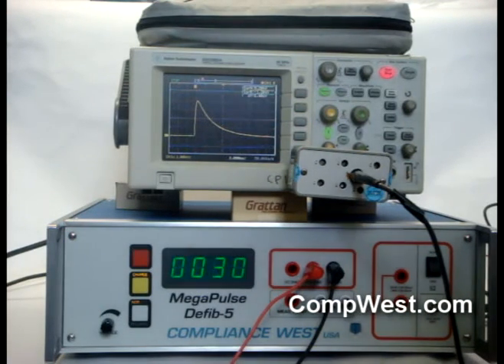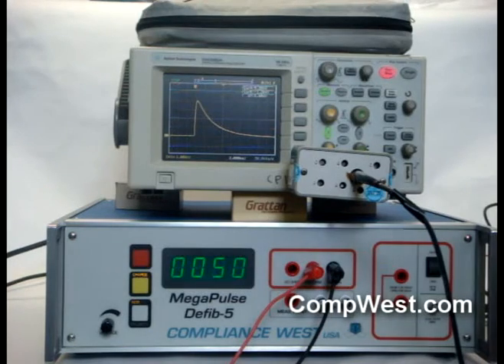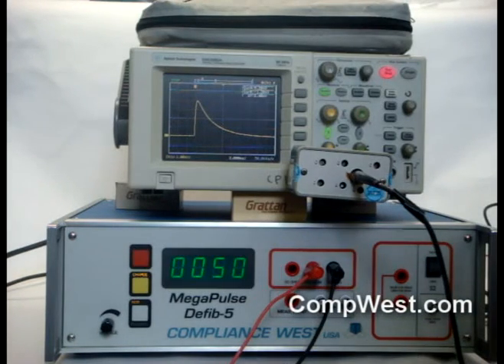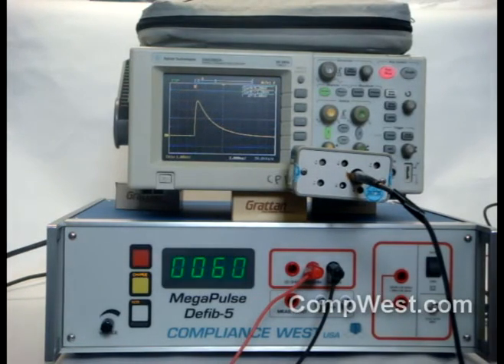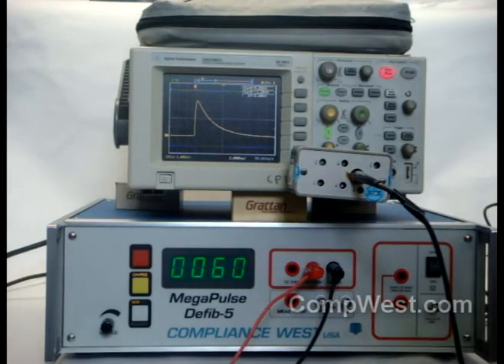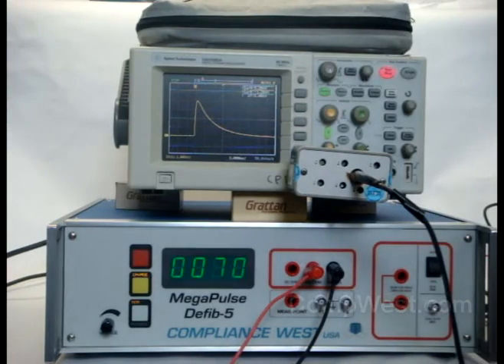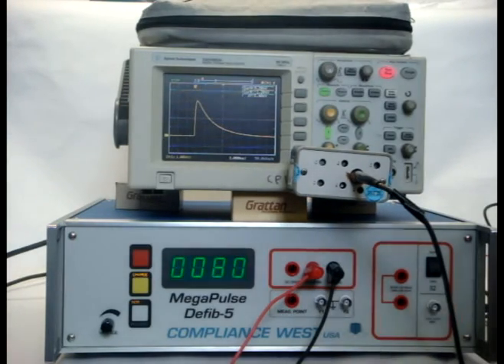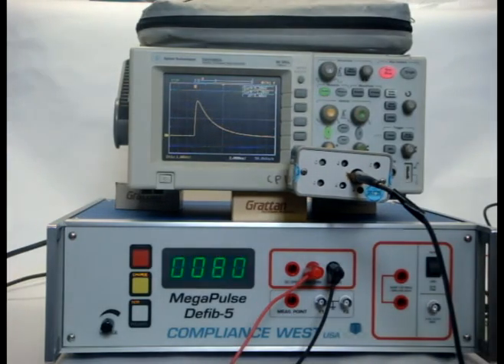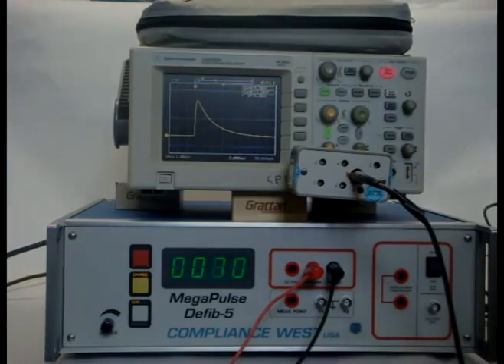The voltage waveform of the 100 ohm resistor internal to the Defib 5 is now displayed on the oscilloscope. This waveform is now captured and can be saved for export and further manipulation by Excel, as described in our video, Energy Determination Using Excel.